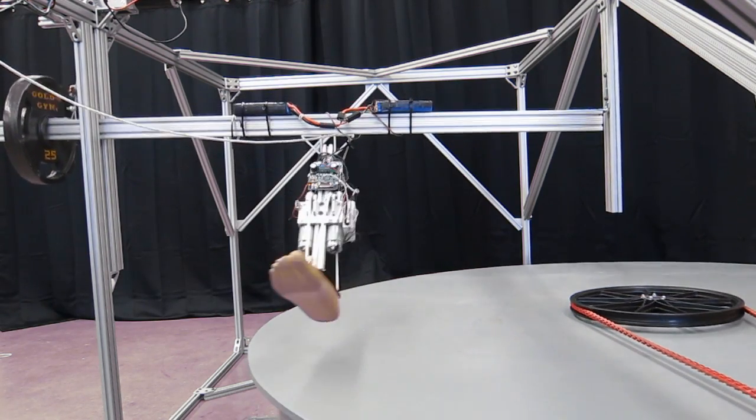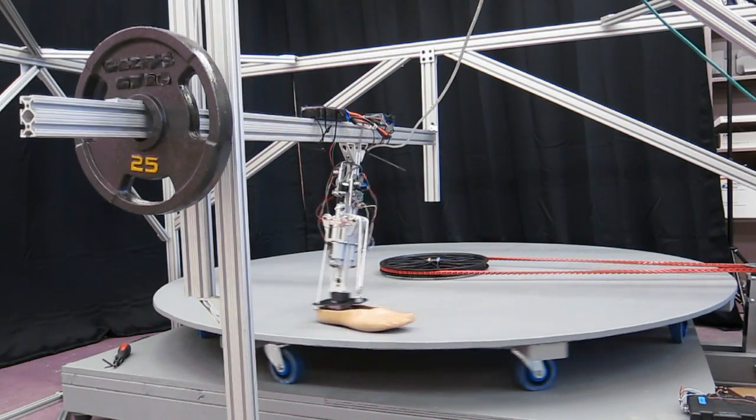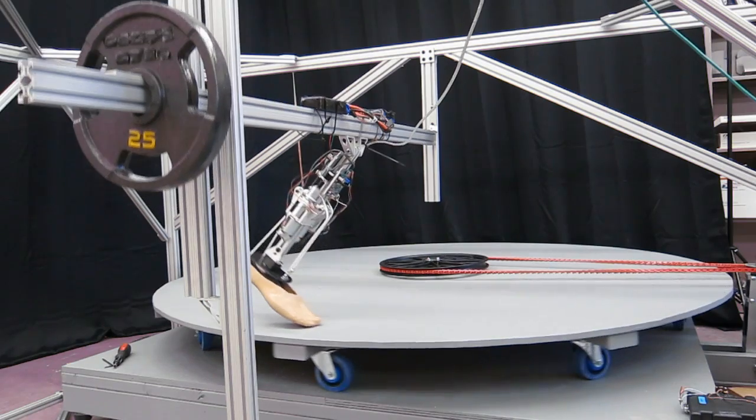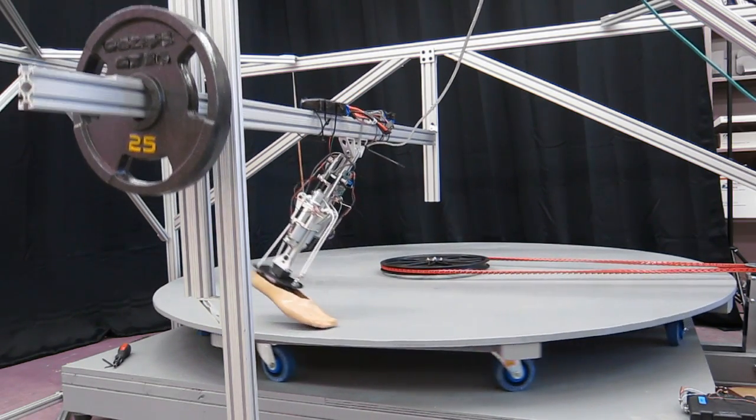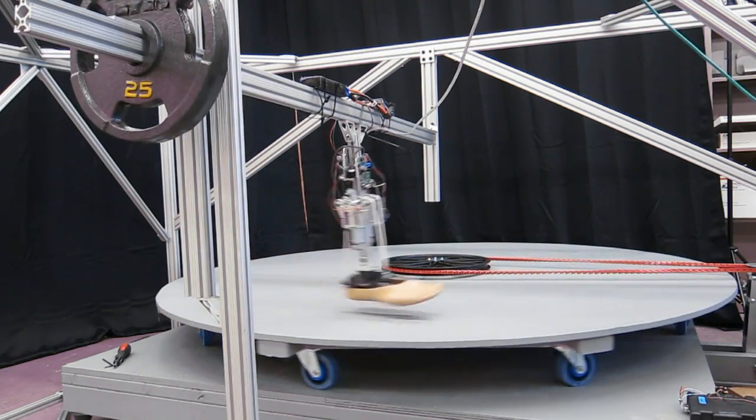My long-term goal is to understand the varying dynamics of the human ankle during different maneuvers of gait, especially turning and changing direction, and incorporate these findings in the design of a steerable ankle foot prosthesis.